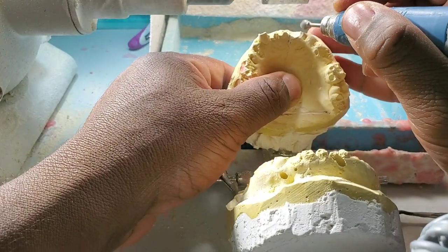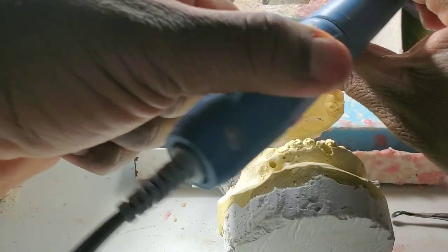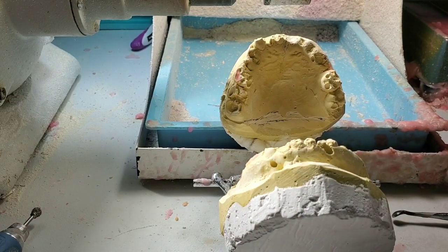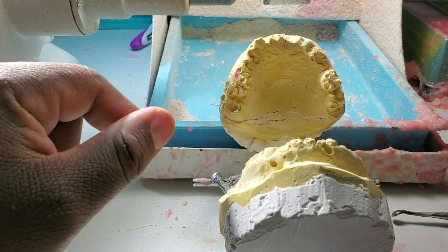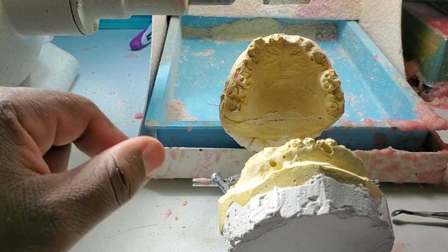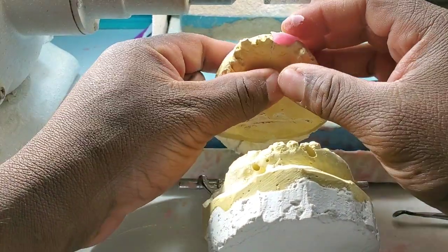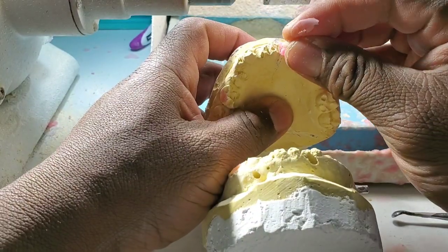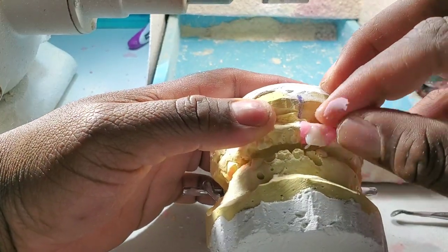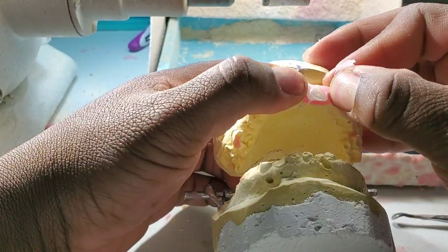You can take a little extra off but not too much, because when you're pulling teeth you're going to create a hole in that area and it heals. Making a significant indentation sometimes isn't a problem, but when you're finishing you kind of look inside — if there's a bulky indentation area there it may bother the patient. So I'm replacing tooth by tooth.